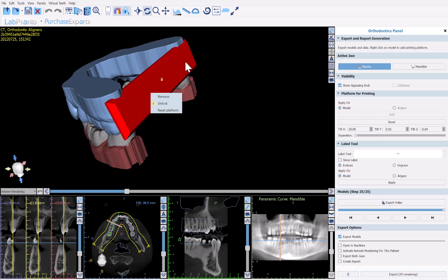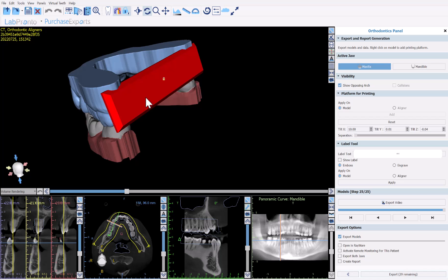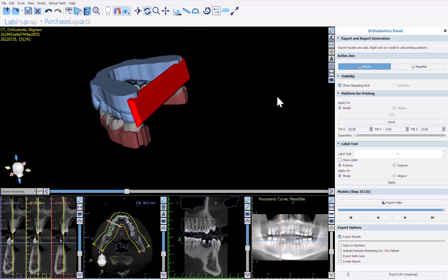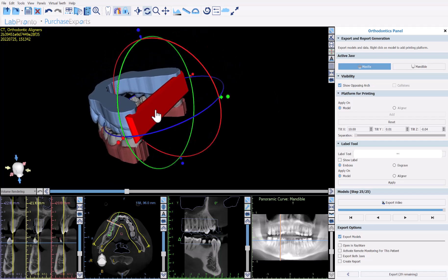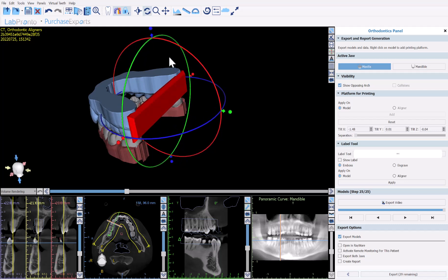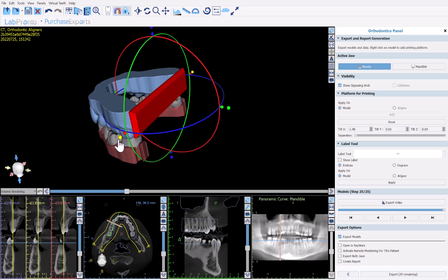The software places the platform based on a rough approximation. What the user should do is right-click and choose unlock, click on the platform, zoom out a bit so you have it in your widget, and use the widget to fine-tune the placement. You want the platform to cover the heels of the models — it doesn't need to extend past the heels.